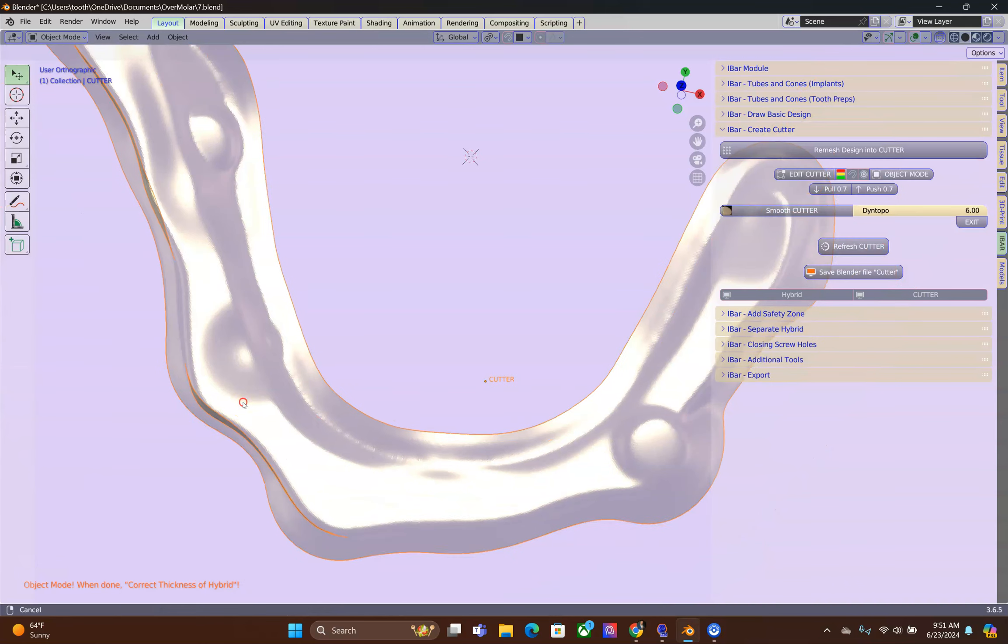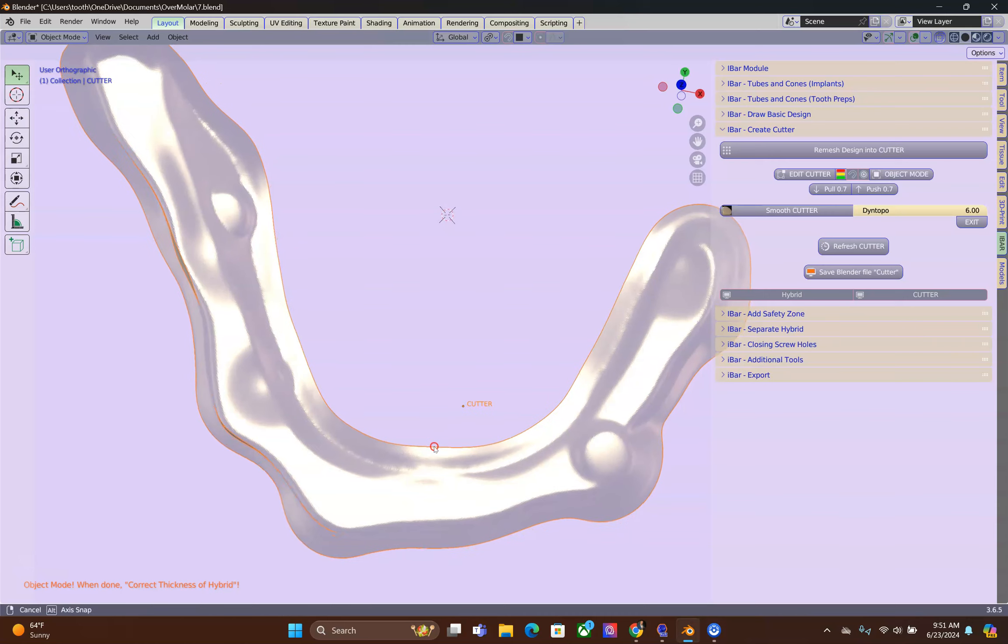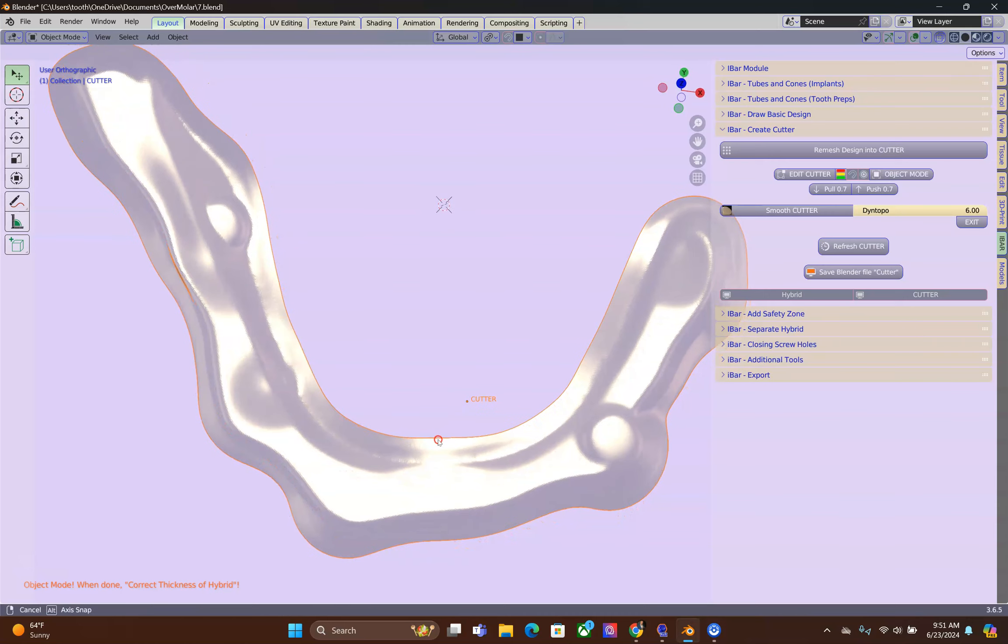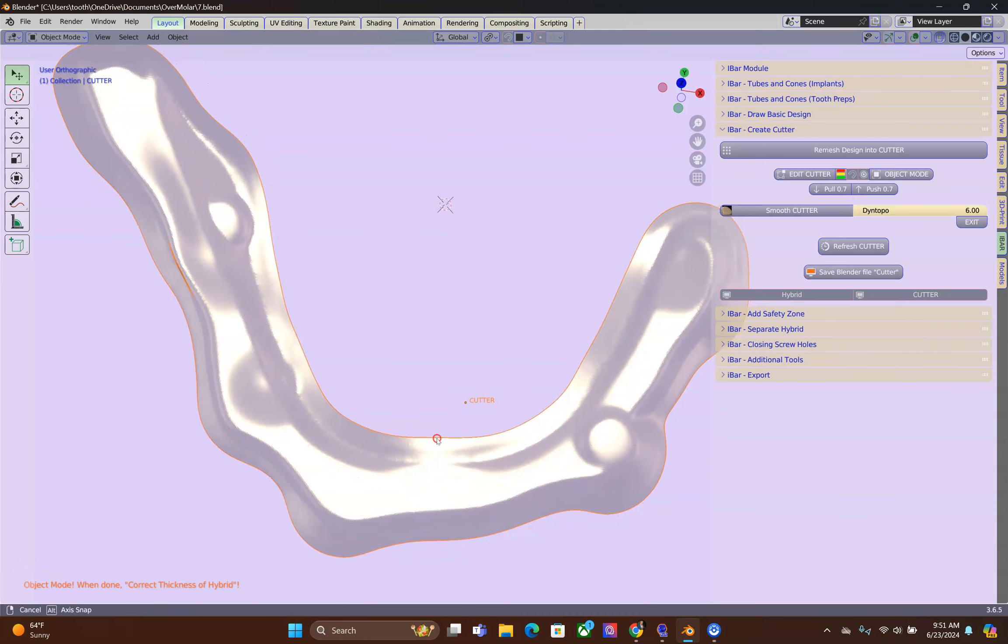If you are in doubt, use the block out module to get rid of these undercuts. Now, here it appears that we have some undercuts. But, when I rotate the scene, then they will disappear.